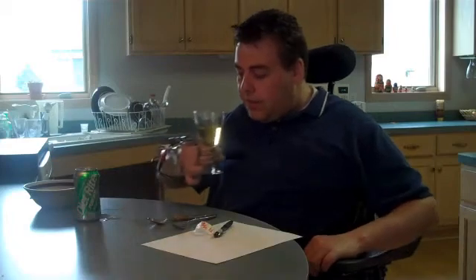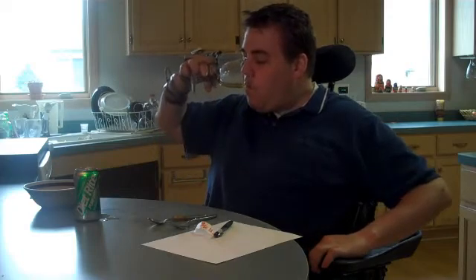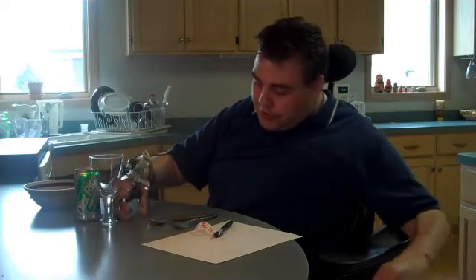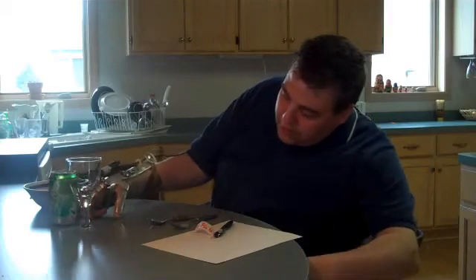I just started using the EMG switch this morning, so obviously with a little practice I'll get a bit better. I pick up the glass and take a drink — which, of course, could be wine or one of your favorite beverages. By the way, this particular glass I found at IKEA — I like the wide stem. Now I'm switching back over and using the Roughneck switches, demonstrating both methods. I'm going to push the can of soda and glass out of the way so I can bring in the bowl of water.